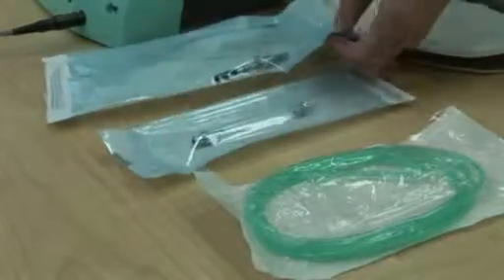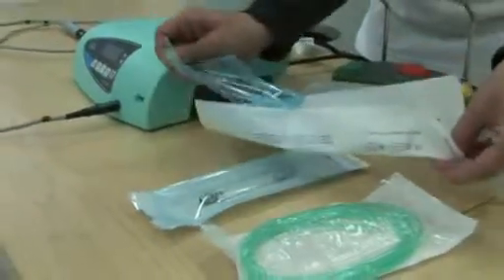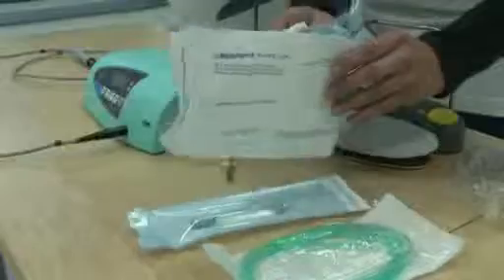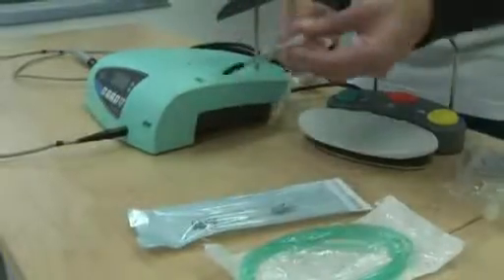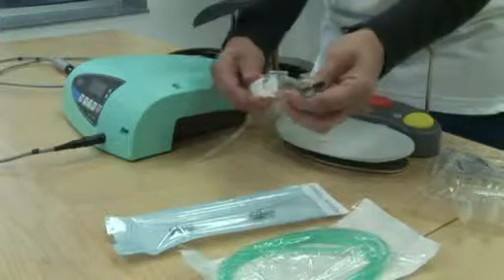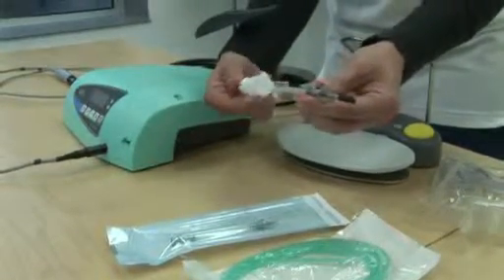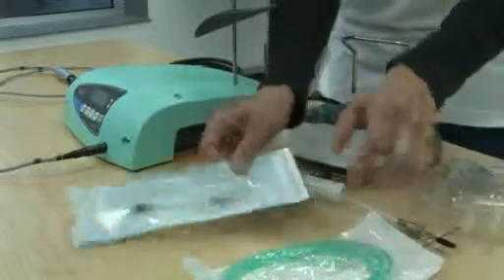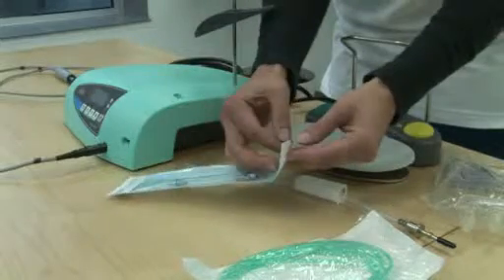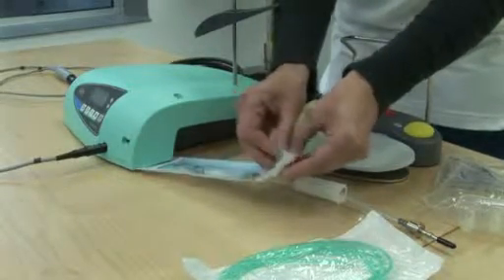The first piece, the spike, is made up of silicone tubing, roller clamp, and metal spike. You want to make sure that the roller clamp rolls freely and keep it in the off position. The second piece is the pump tube complete with metal ends. Please note that both of these pieces need to be sterilized before each use.